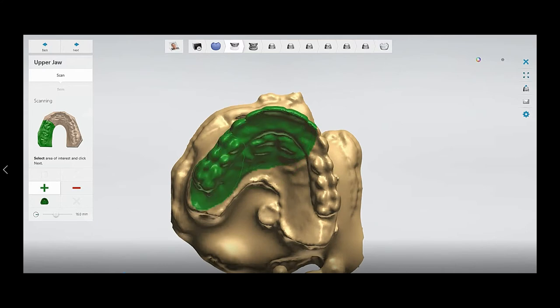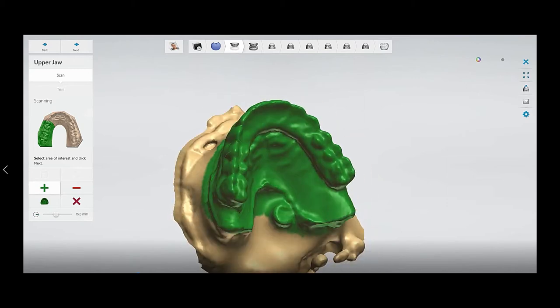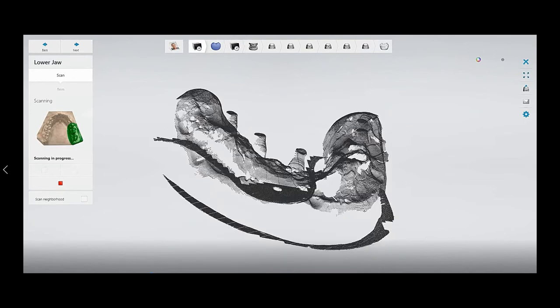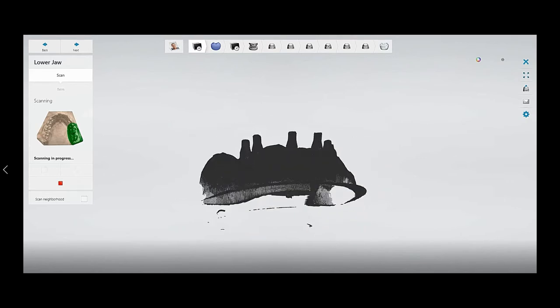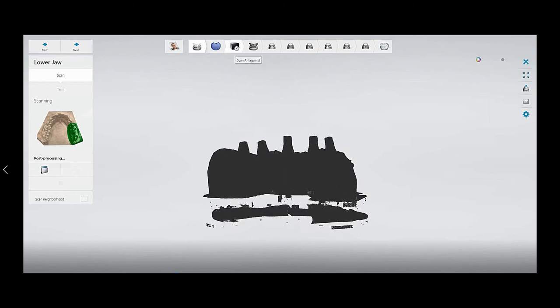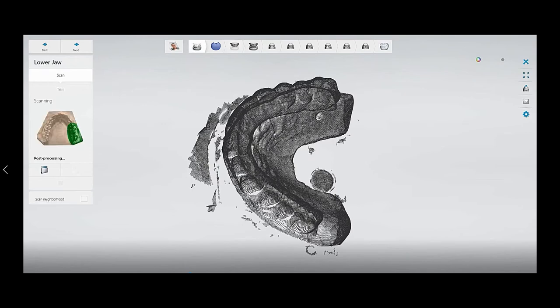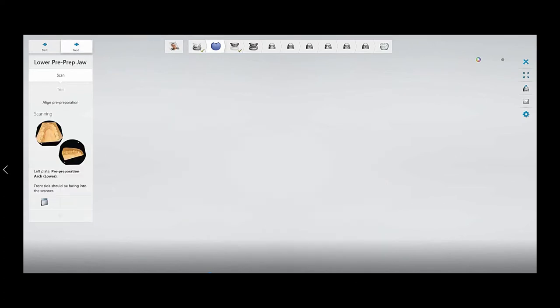You can see it has started scanning now. You have to select the positioning which you want to be scanned and press Next. You can see it is scanning step by step. Now you can see it is post-processing — it will take one to two minutes depending on the number of units. You can see the green tick button, which means it has scanned successfully.